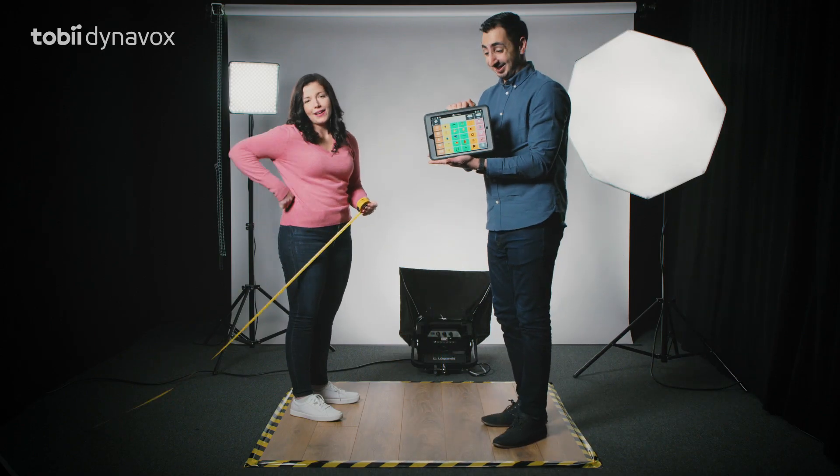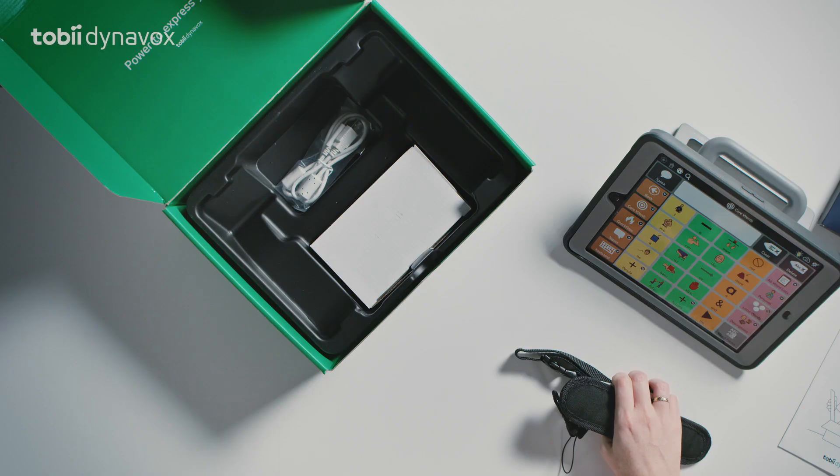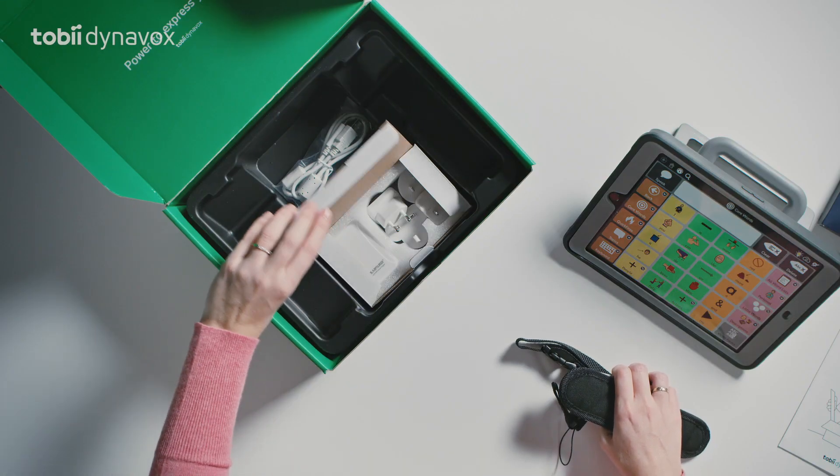See, I never had a doubt. Last but not least, a power charger with adapters and an adjustable shoulder strap.